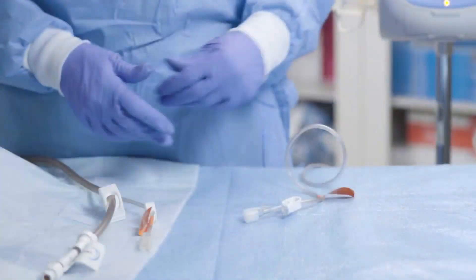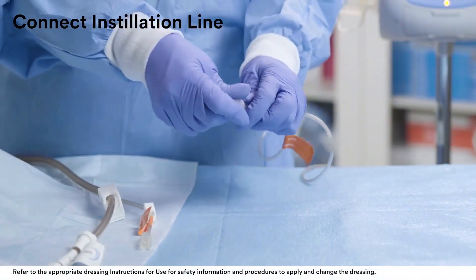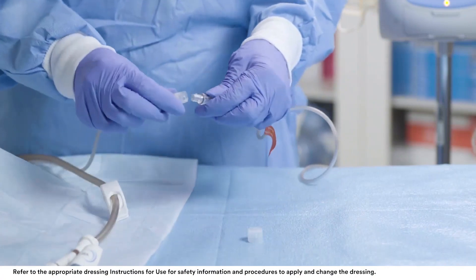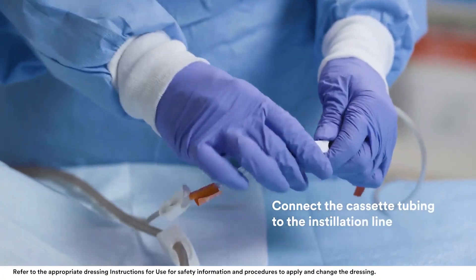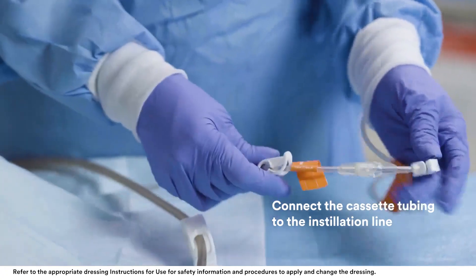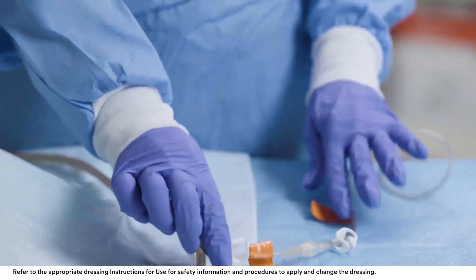To connect the instillation line, first remove the cap from the end of the cassette tubing. Next, twist the connectors until the locking tabs are fully engaged. Finally, open all tubing clamps.